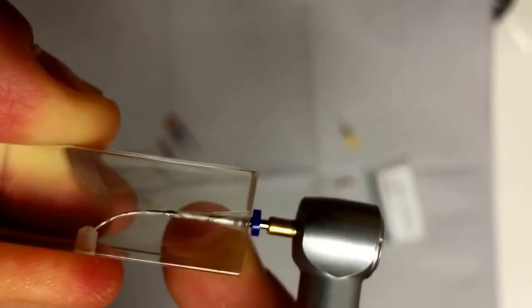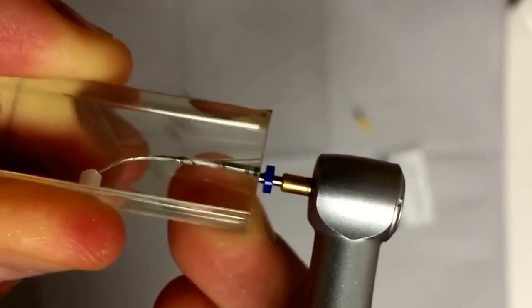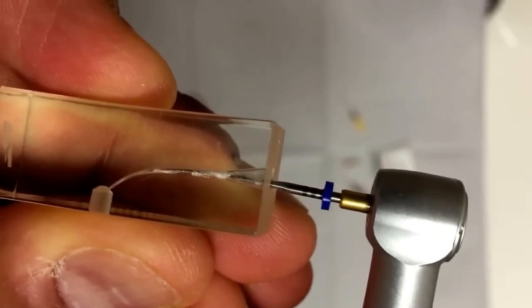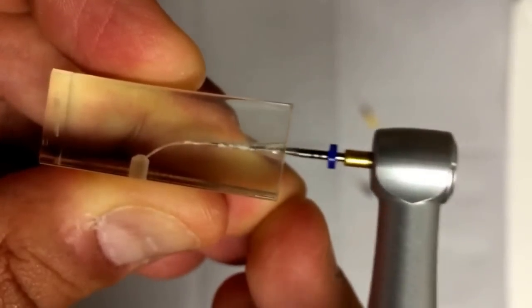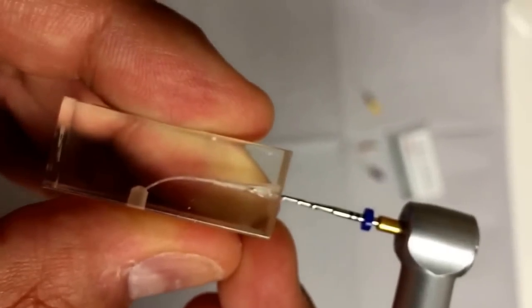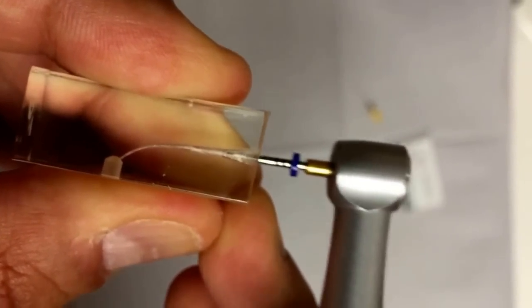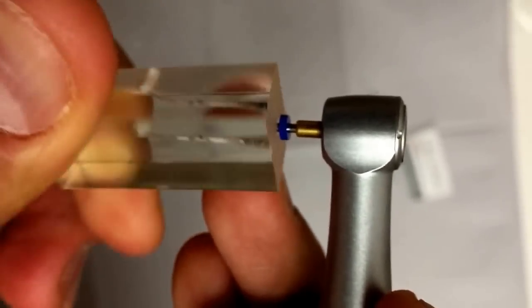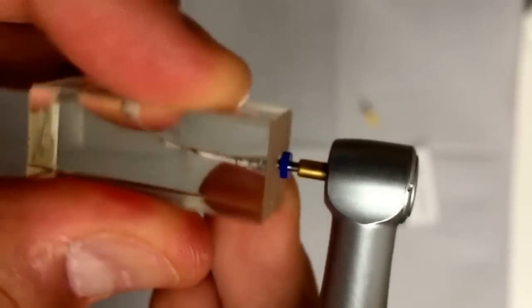If we do it again with a 25.06 — it's locked in. I'm going to pull that out and go back on reverse. So this is locked in. I have my 25.06 locked in, so I'm going to reverse out. I'll try that again to see if it locks me in again. Yep — locks me in again. The 06 may not be able to negotiate this gentle curve.